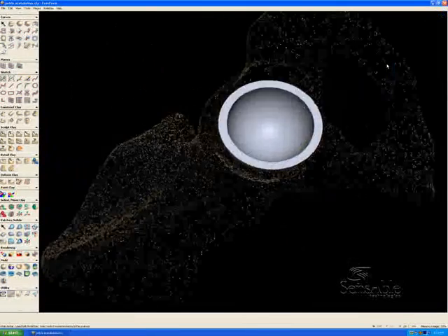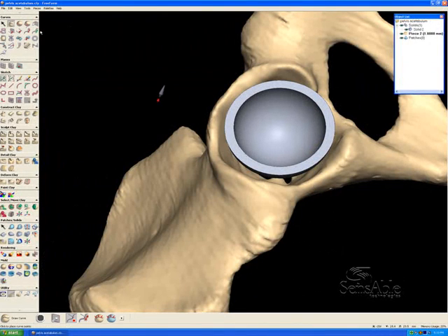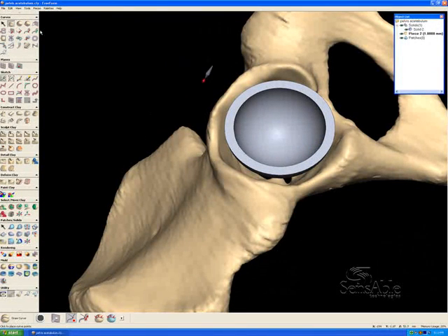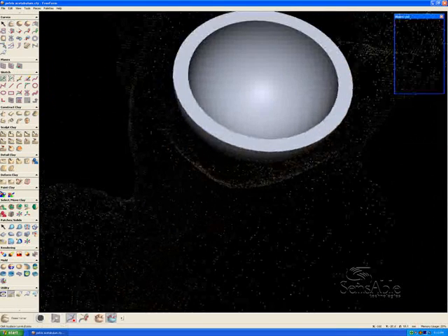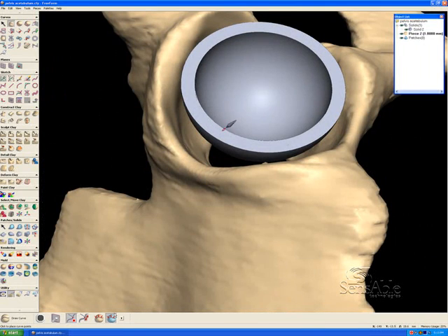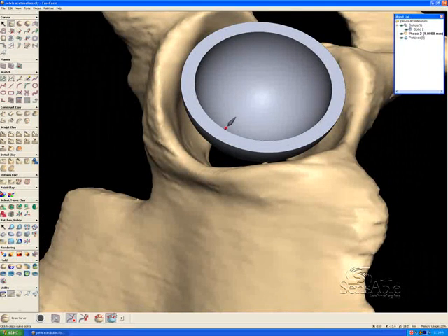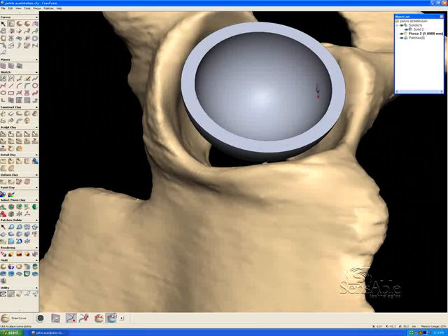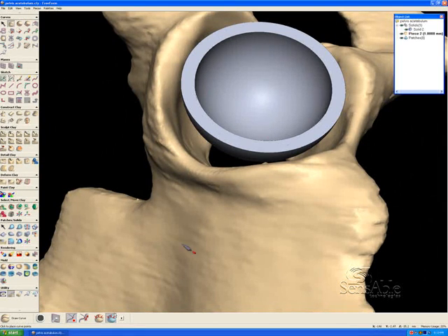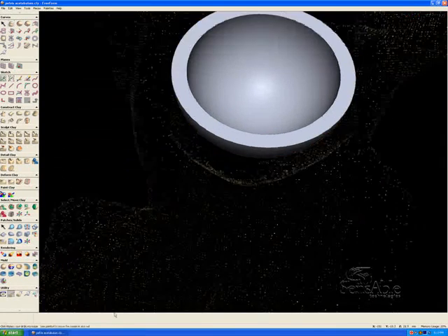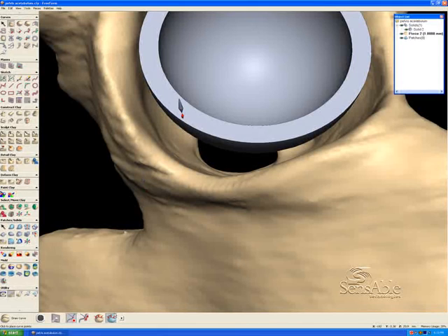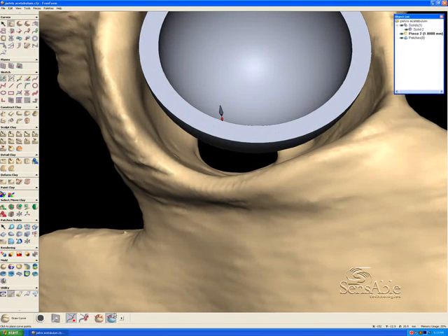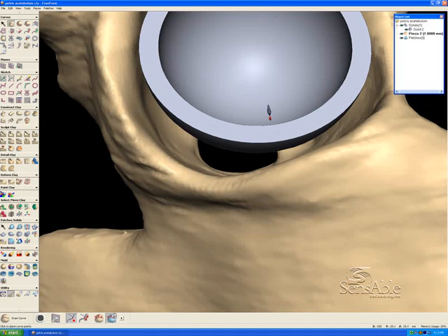I'm going to show you a workflow that involves half a dozen tools or so in Modeling Plus. The first one is going to be a curved drawing tool. I have this pen stylus here and I can physically go in with the phantom desktop device. I'm physically touching this cup here and I can rock around on the inside of it. I can also feel the clay of the pelvis as well. What I want to do is draw a couple lines, a couple curves, that are going to span this distance between this edge and this edge.